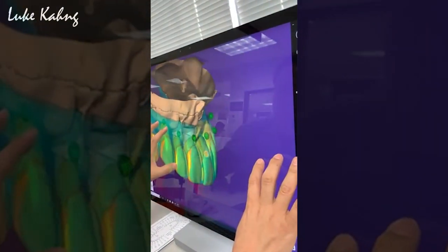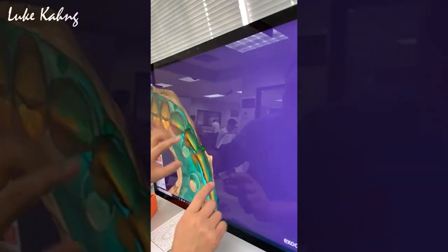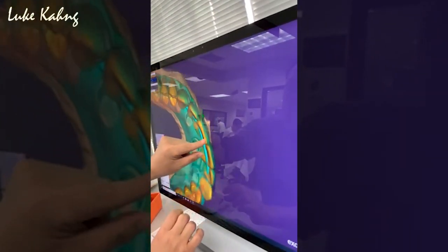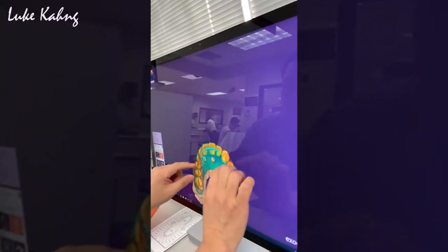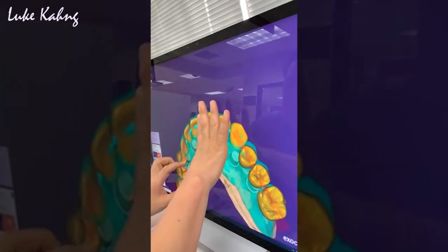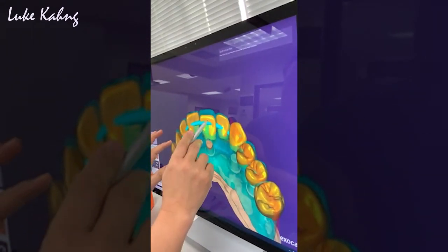Then I'm trying to match the size-wise and other things. The cool part is here — I can control so many things by hand. Like this. Not only this, I can utilize this movement as a tooth.